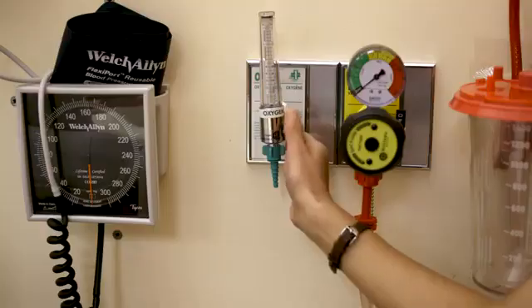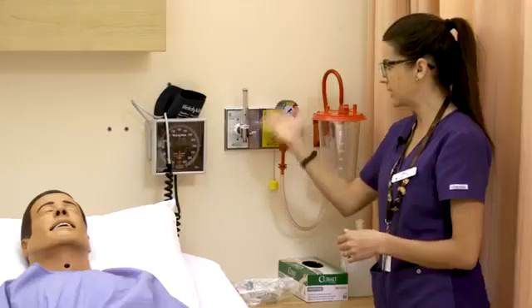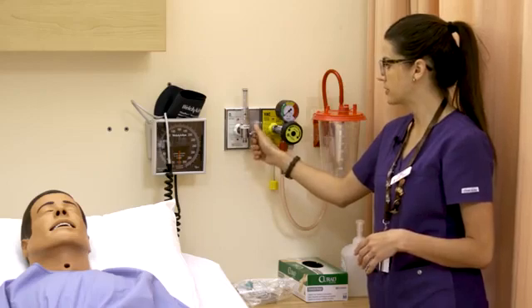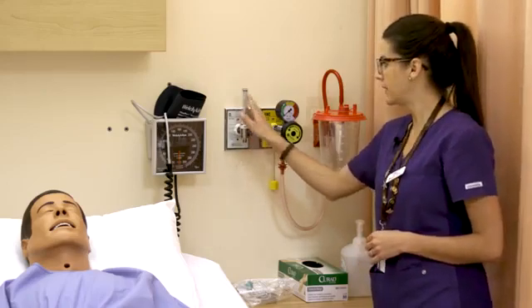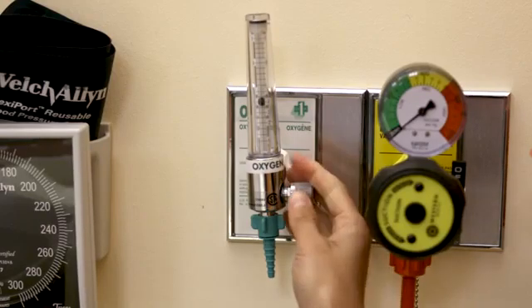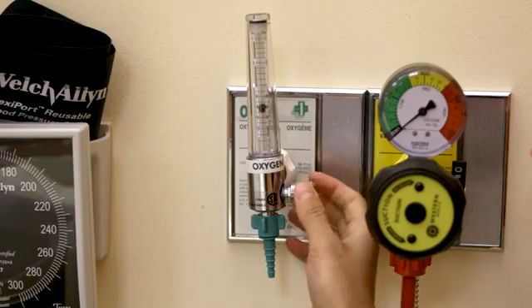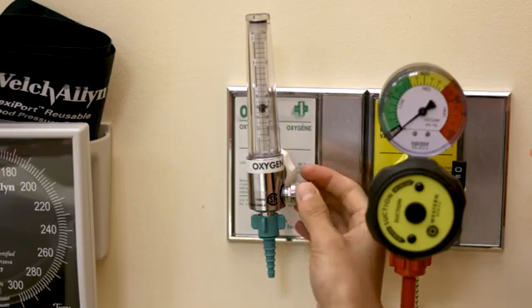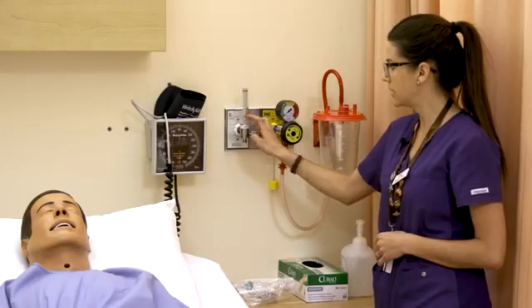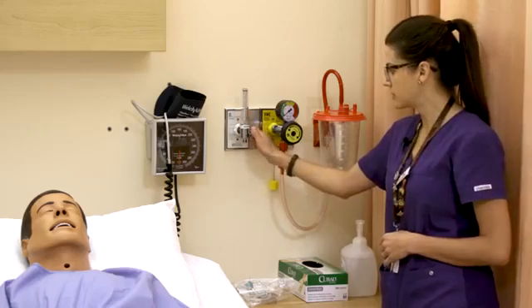If you turn the dial towards you, you can hear the sound and this little ball in here will start to raise. There are liters-per-minute markings on the side. How we know how many liters per minute is the number we go to when it cuts the ball off right in half. Right now the ball is cut off at two, so that's delivering two liters per minute of oxygen.